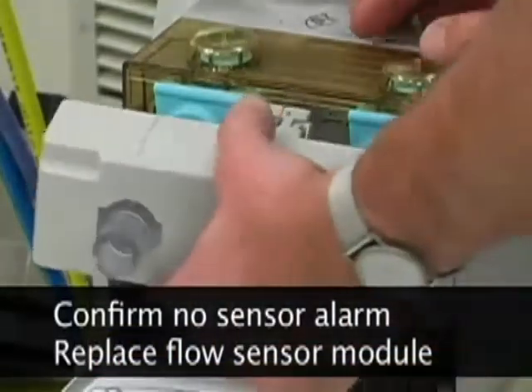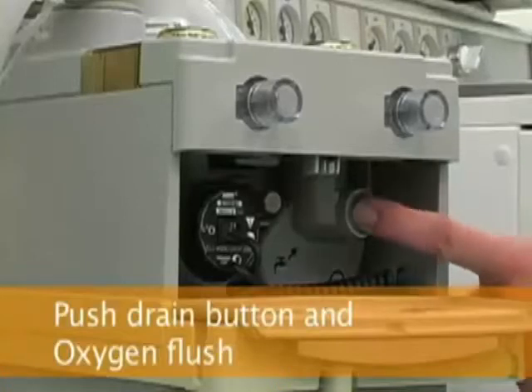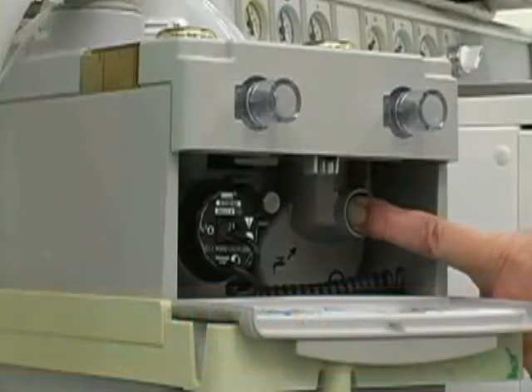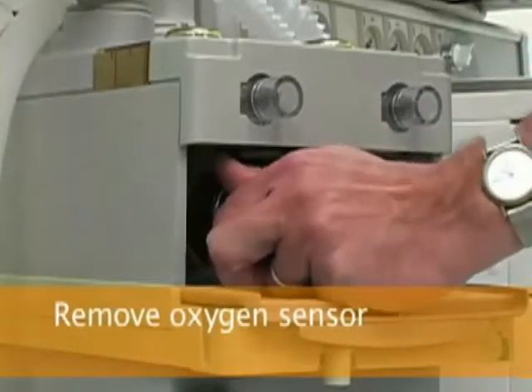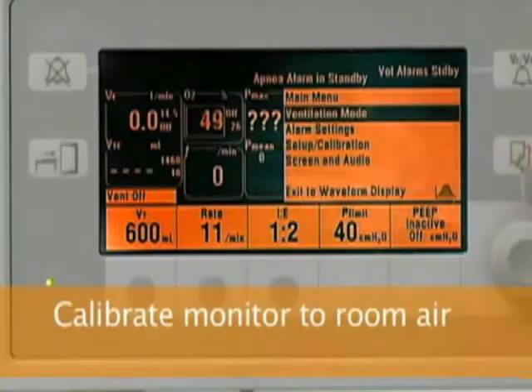To flush excess water from the machine, push the drain button below the flow sensor module while simultaneously pushing in the oxygen flush valve for 10 seconds. To calibrate the oxygen sensor to room air, locate the oxygen sensor below the flow sensor module and remove it by turning it counterclockwise. Let the oxygen sensor hang freely.